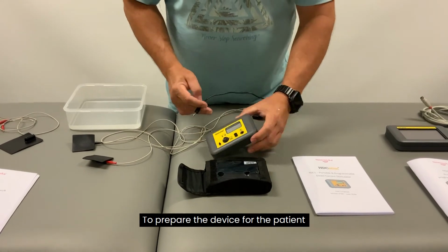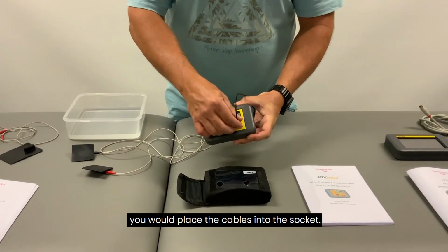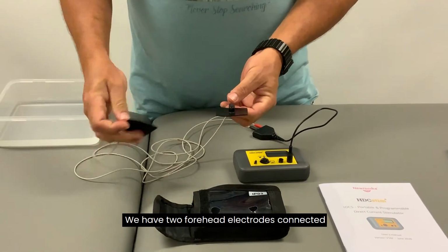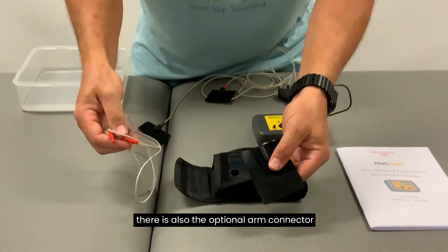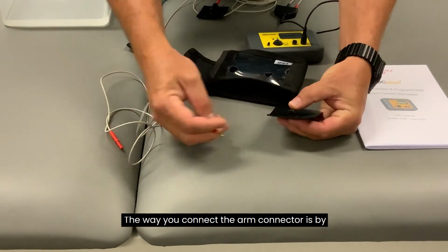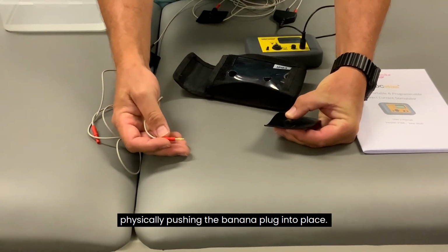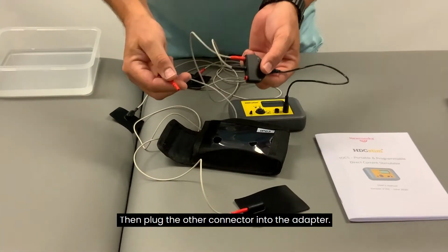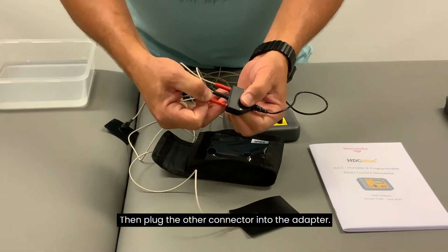To prepare the device for the patient, you would place the cables into the socket. We have 2 forehead electrodes connected. There is also the optional arm connector. The way you connect the arm connector is by physically pushing the banana plug into place. Then plug the other connector into the adapter.